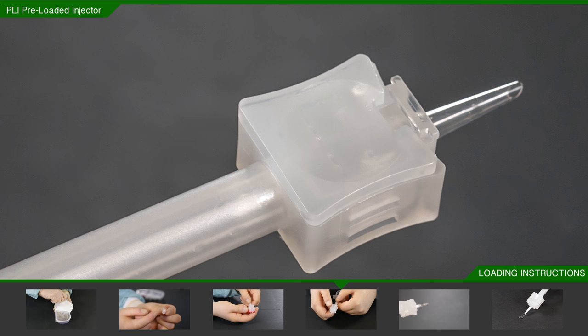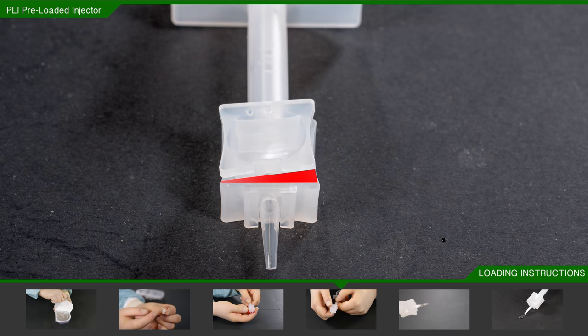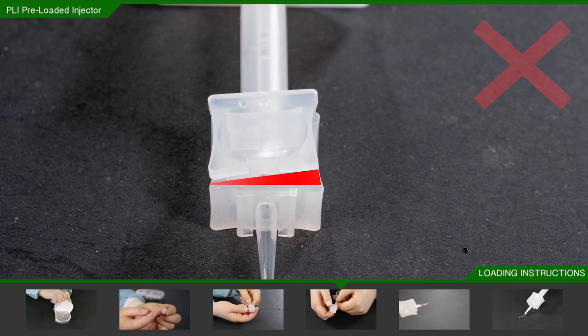When you have pressed the loading tab into place, check that it sits flush against the PLI body without any gaps. If you find any gaps, repeat one of the three ways again and recheck to see if it is in the correct position.